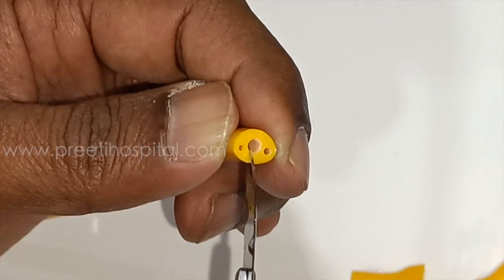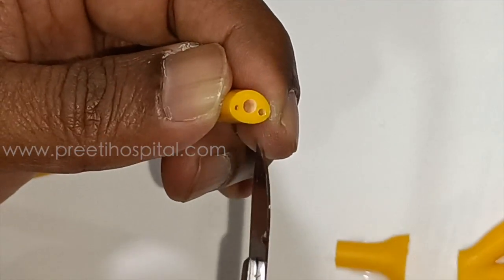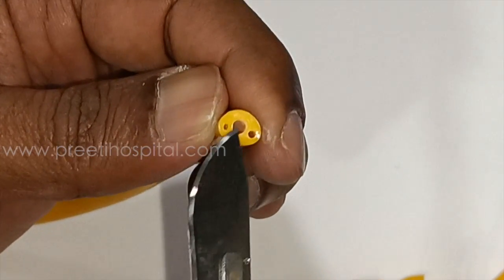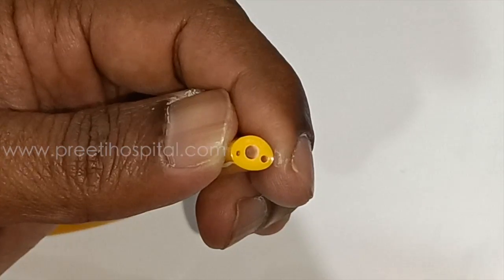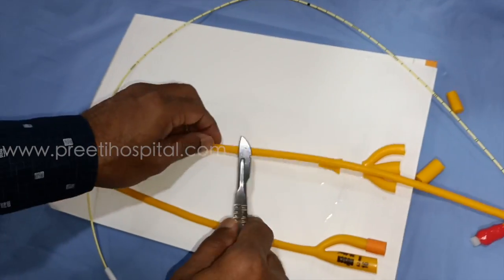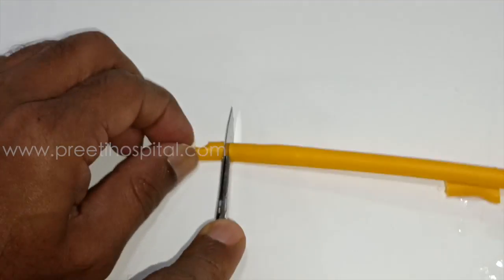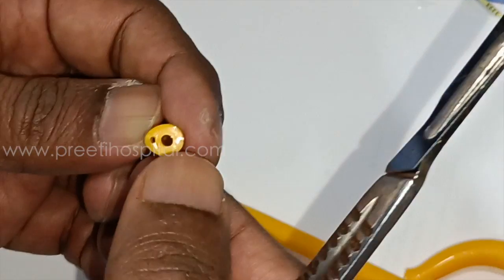The lumens are surprisingly very small in a 3-way. So, if you don't understand these 3-way lumens, the clot evacuation is very difficult. In the post-operative period, usually if big clots are there, this 3-way catheter for irrigation and clot evacuation is very difficult.